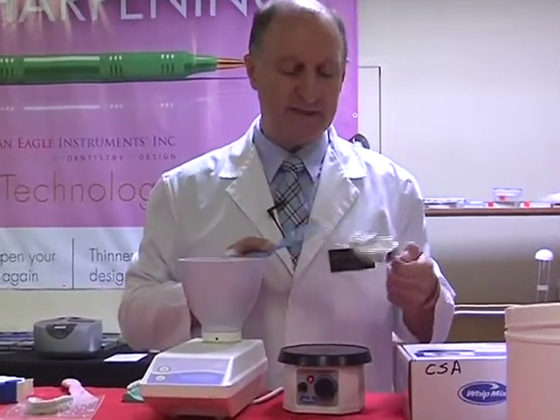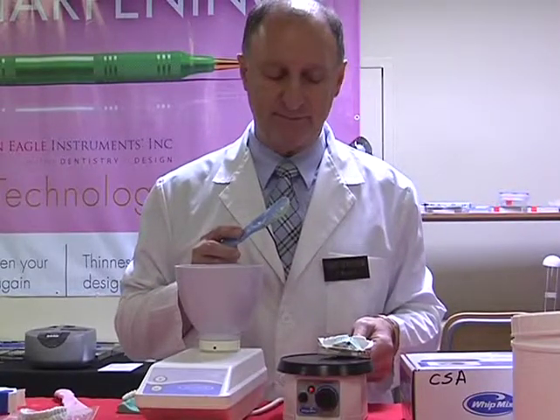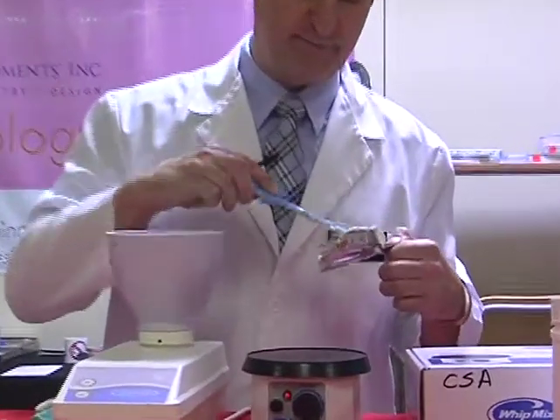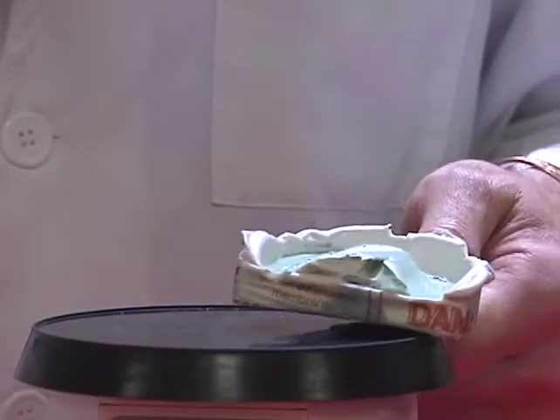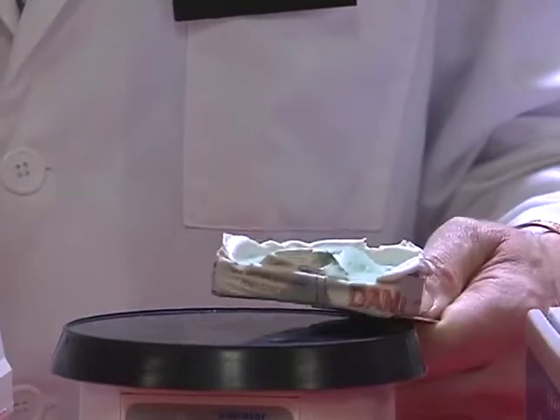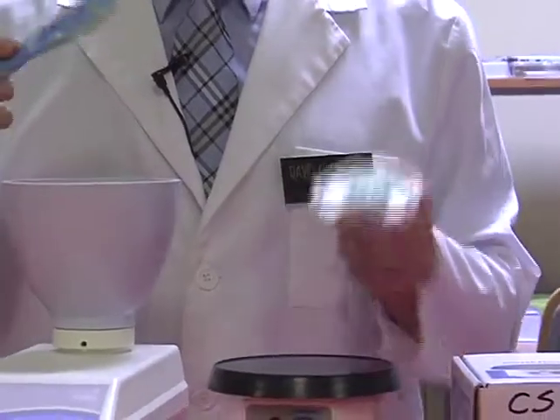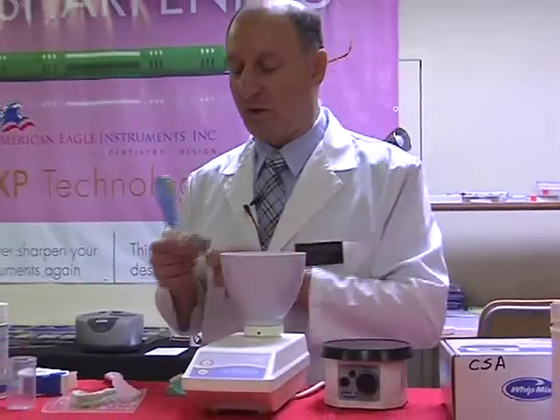Put a small amount of that stone on the surface and just allow it to seep in. Take a little bit more of that material and do the same thing again. Now at this moment I'm just allowing the stone purely to enter through the teeth only. Notice I do not want the stone to vibrate at all for too long a period of time. That's it. I do not want to vibrate anymore, so let's turn this off.